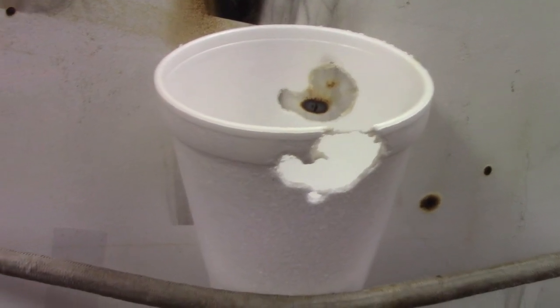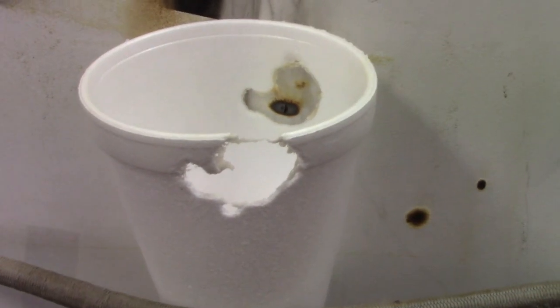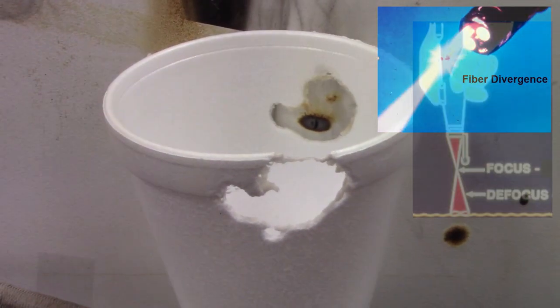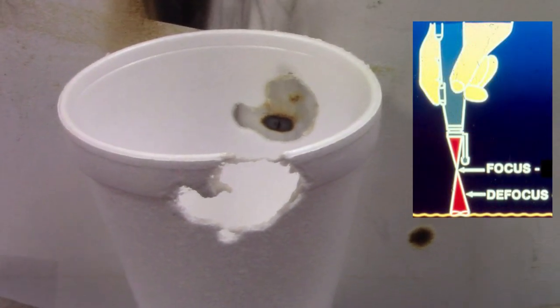Please remember that we generally do not use collimated laser beams for medical surgical procedures. They virtually all go through a delivery device, whether it's a fiber, a handpiece, or a microscope.